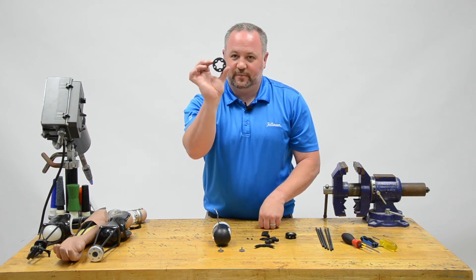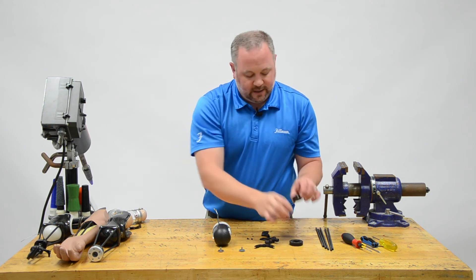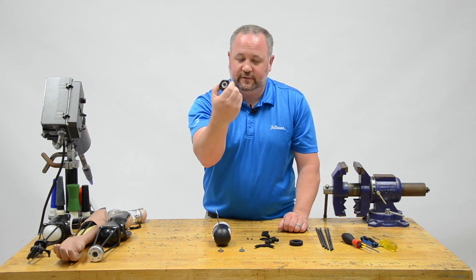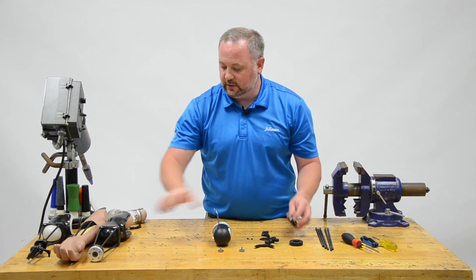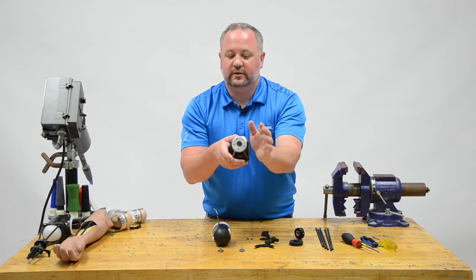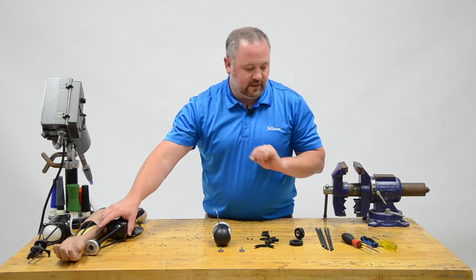You're going to end up with a damper ring, which is to stiffen those rods in the middle so your patient will have some control. Then you're going to have a wrist unit — in this case a friction wrist unit, which is a very small, lightweight option. You can also get a quick disconnect wrist unit. Either one of those will come with the kit.